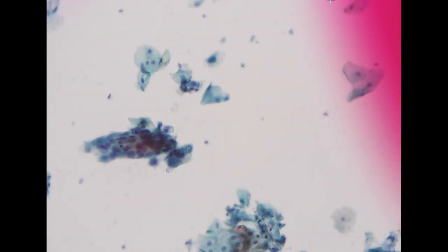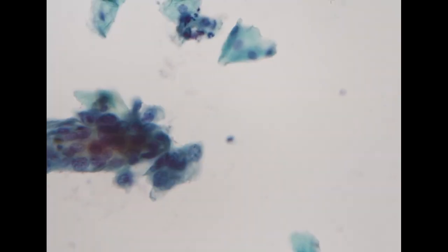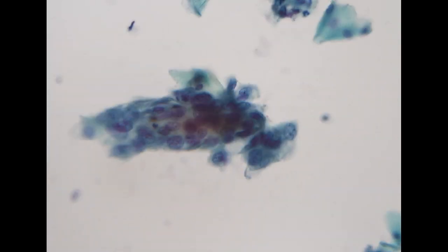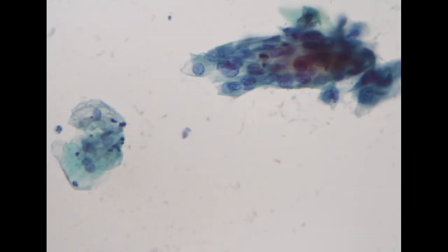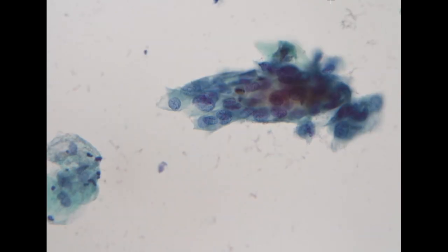So I think she will also receive a biopsy again, possibly without any finding again, and keep following up by pap smear, and then we will see some very typical cells. So this is kind of difficult, but yeah, that's the real world situation. So that's all the cases for today.